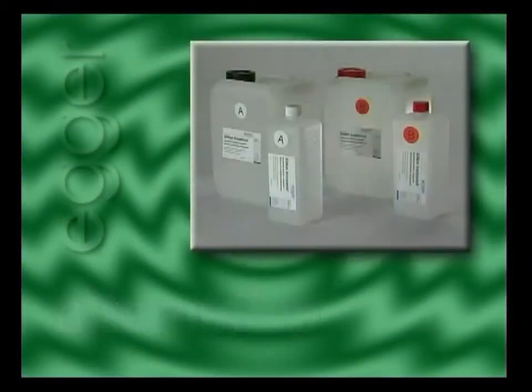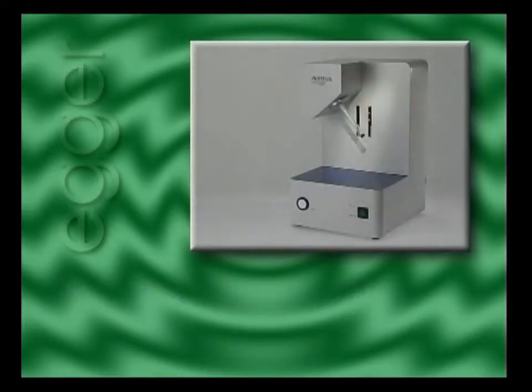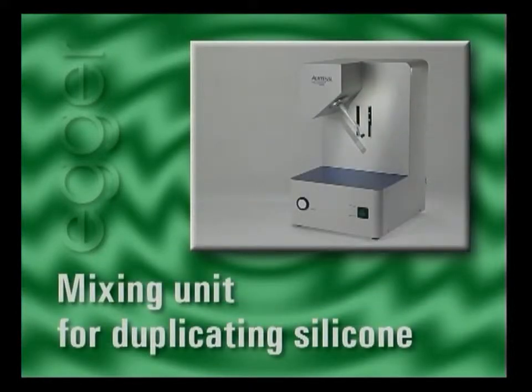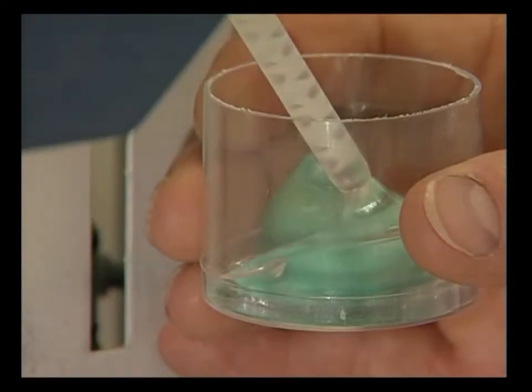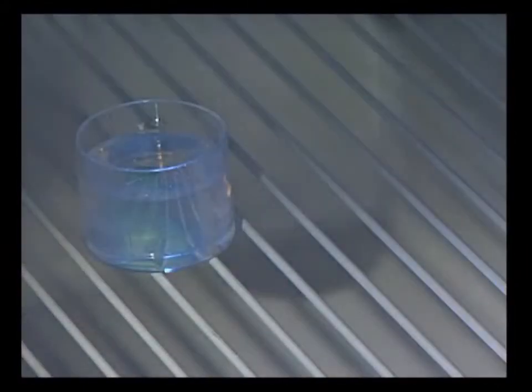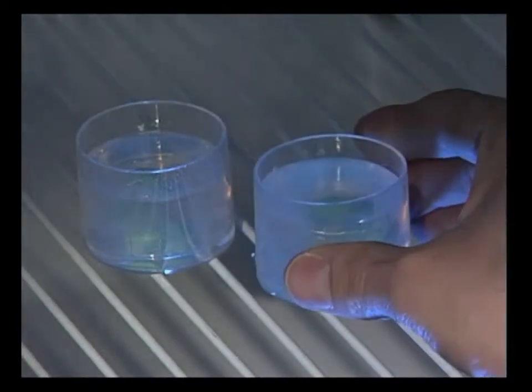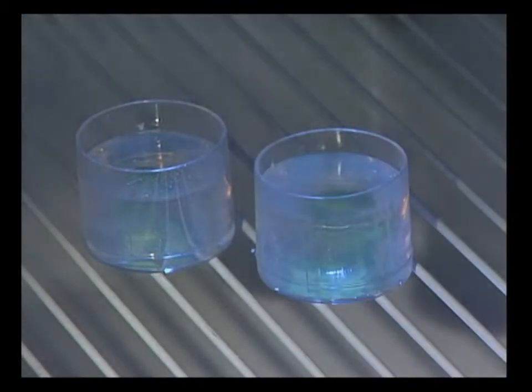The negative form can alternatively be made of transparent silicone, which is automatically mixed in the mixing unit for silicone duplication in a bubble-free process. The investment form is then placed for a minimum of 20 minutes in the refrigerator to solidify the duplicating material.